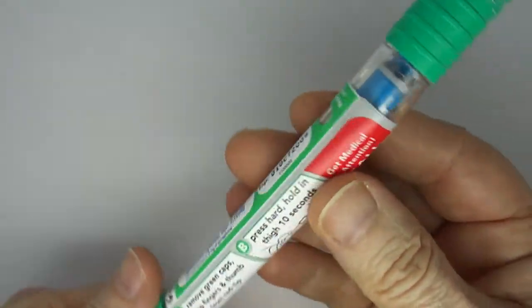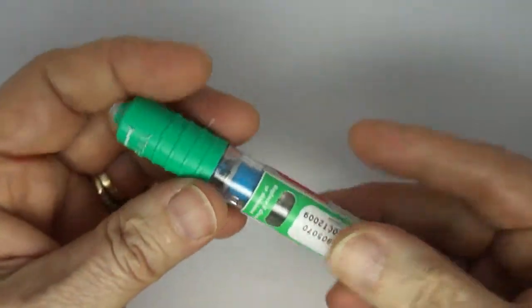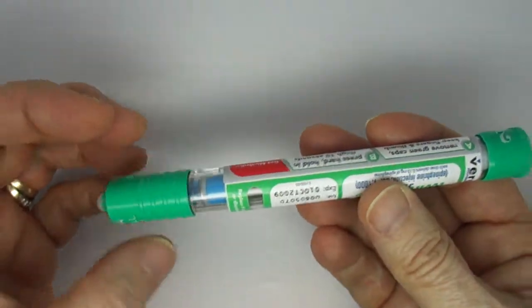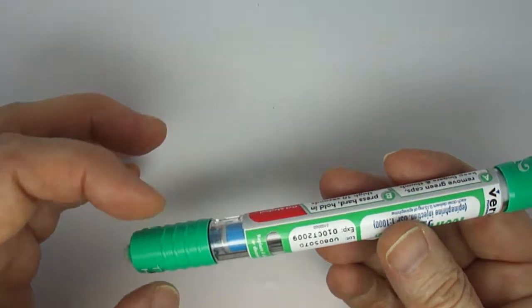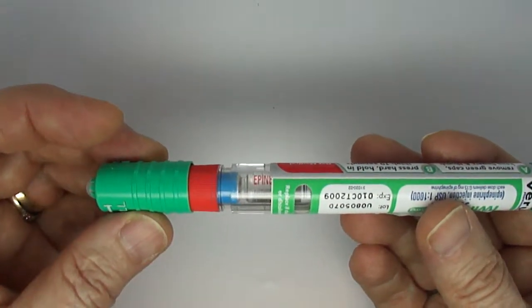And what makes this device really unique is that after you use the auto-injector you have access to the syringe and needle inside to inject additional doses.